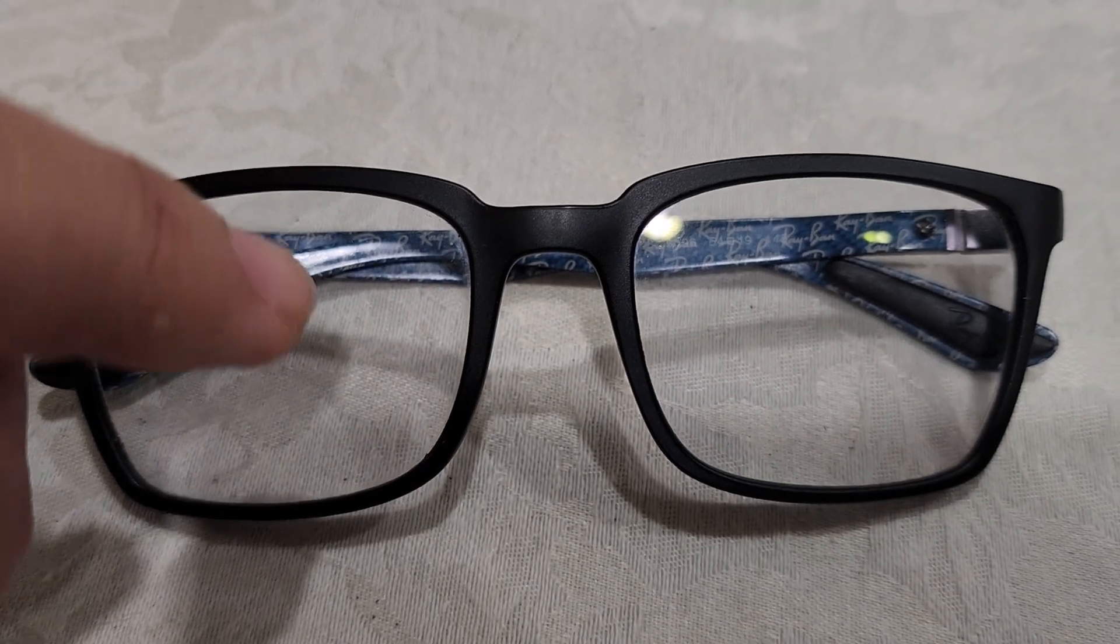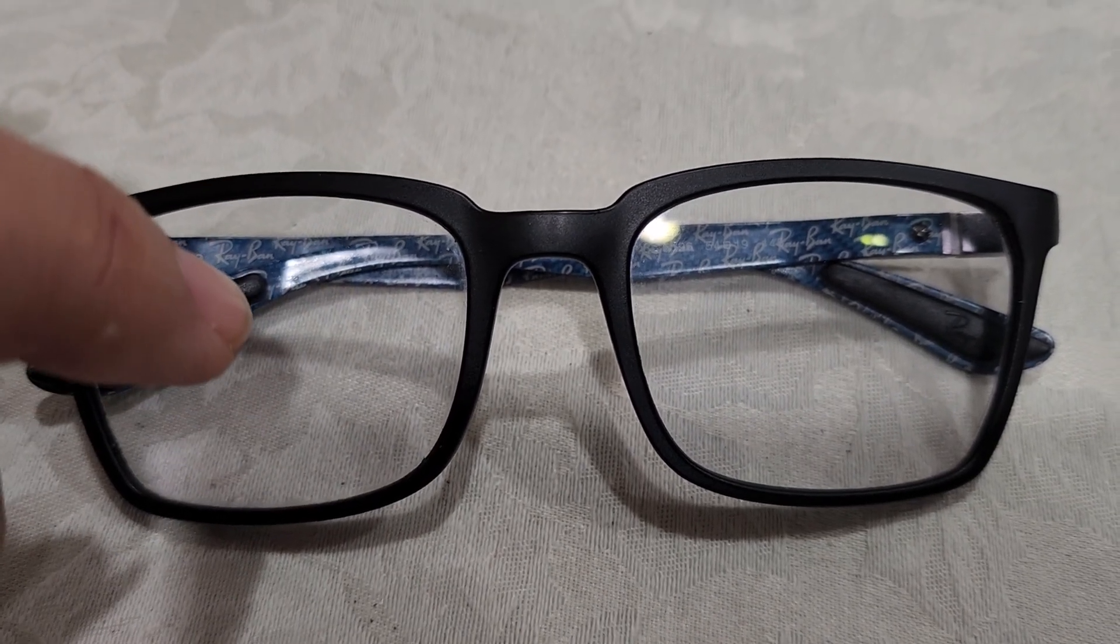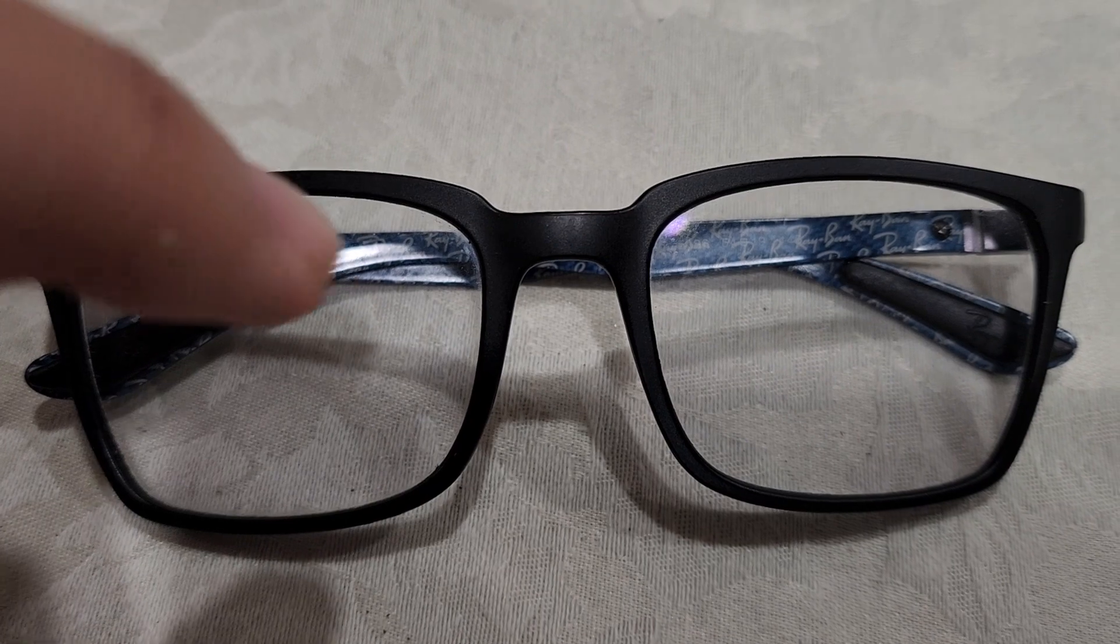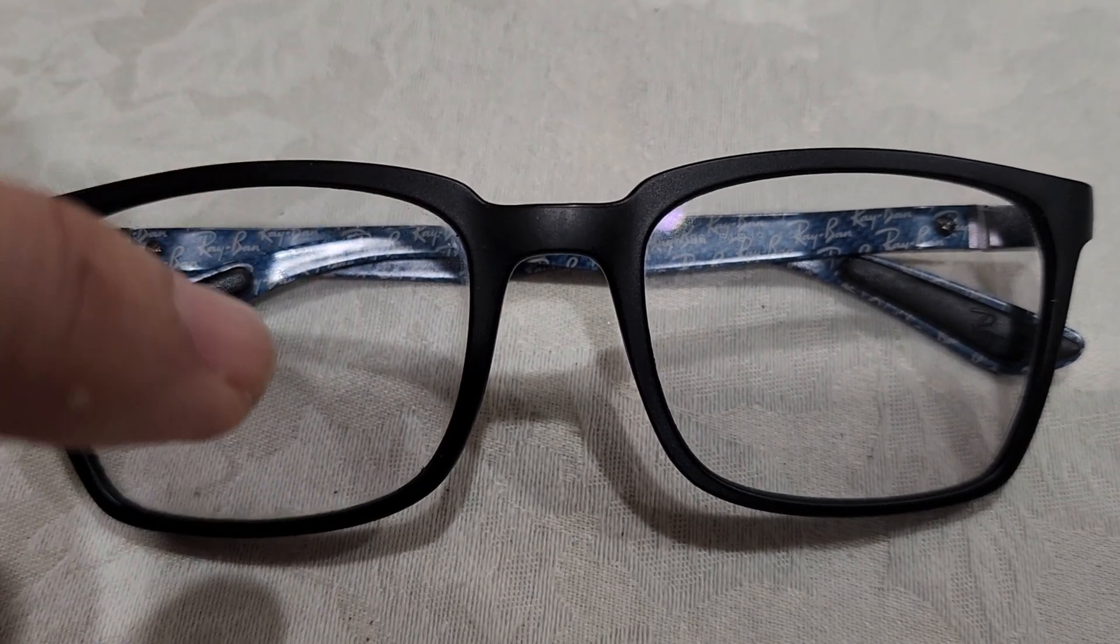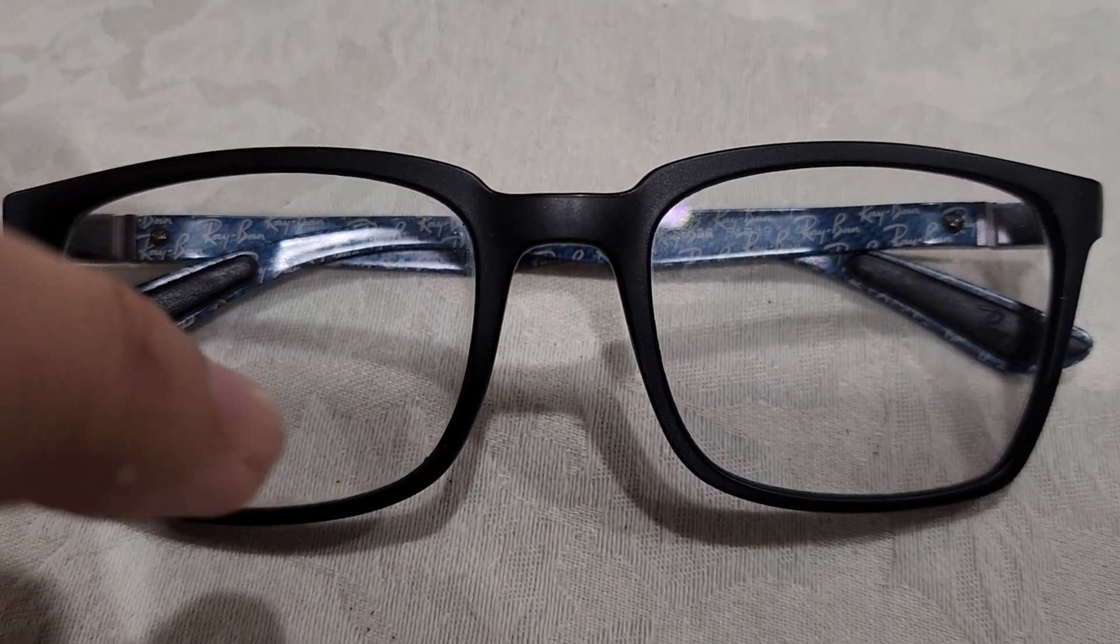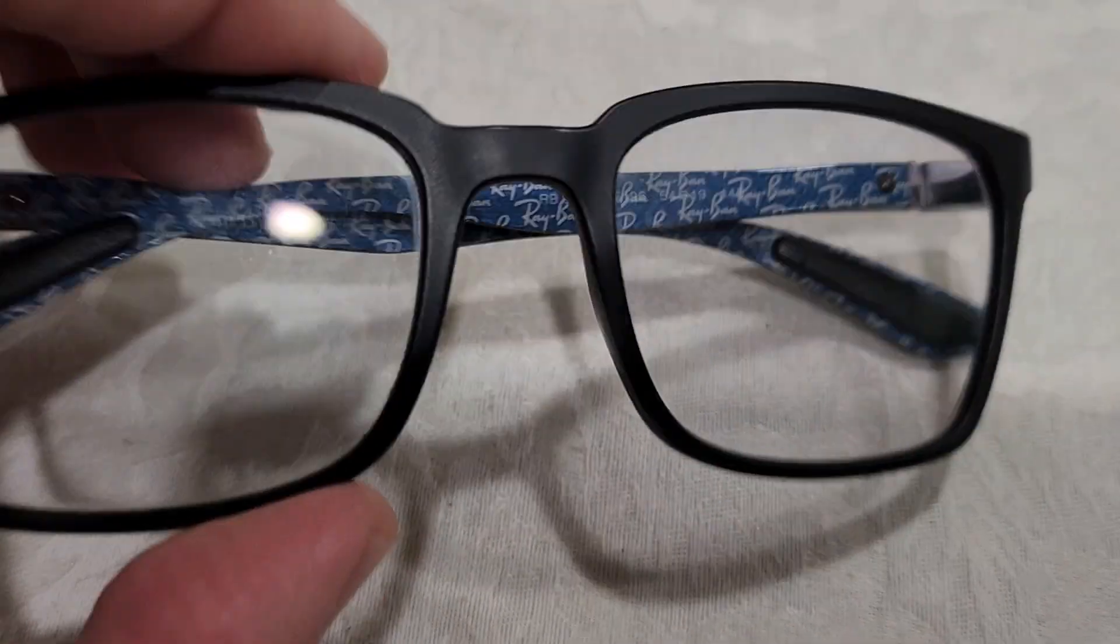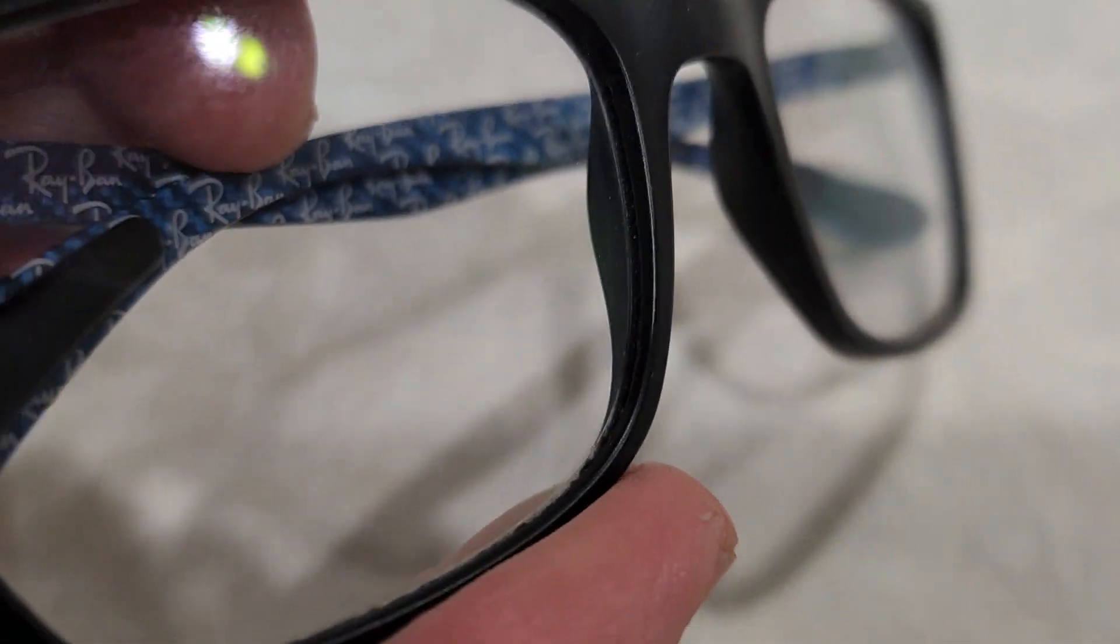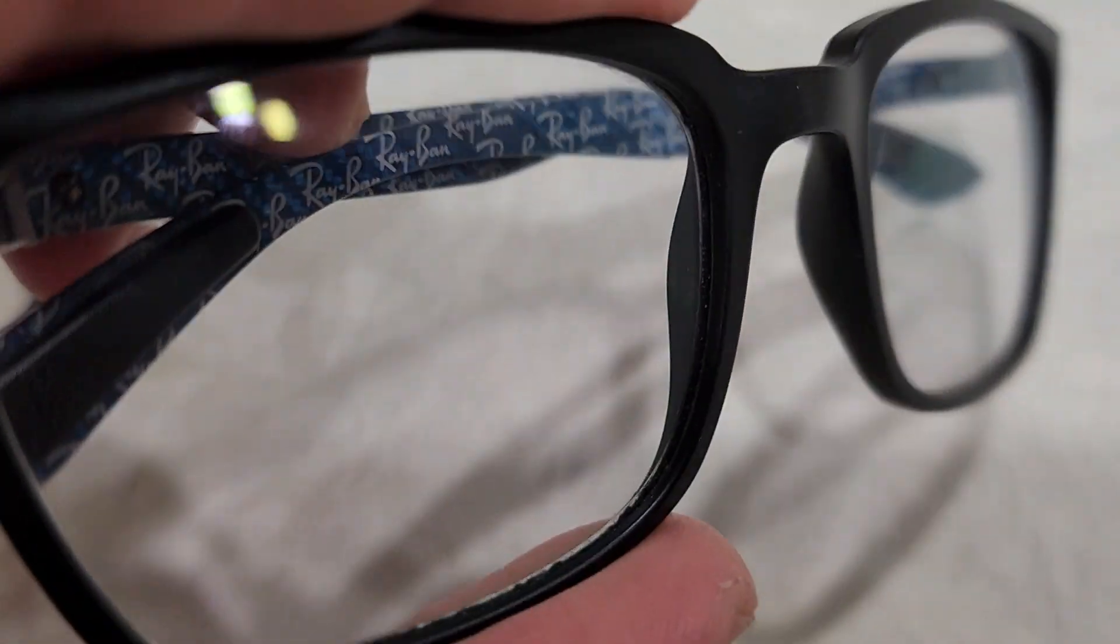There is one for distance here, one here for medium distance, and one here for reading close up. But you can see here it is clear. There are no lines in it, so nobody can tell except you and the way your eyeball goes.